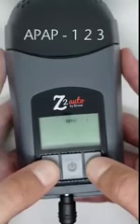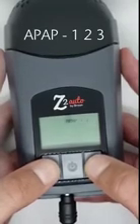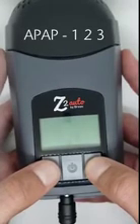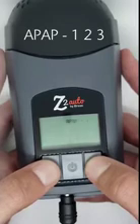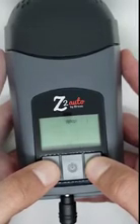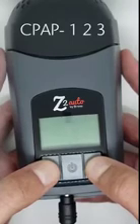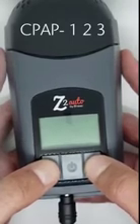You can now scroll through the APAP and CPAP settings using the up or down arrows. The number 1, 2, or 3 that will be seen after the APAP or CPAP represents the Z-breathe setting. We will be discussing the Z-breathe setting more in a moment. Now bring it to CPAP- and the Z-breathe setting you need by clicking the up or down arrow.